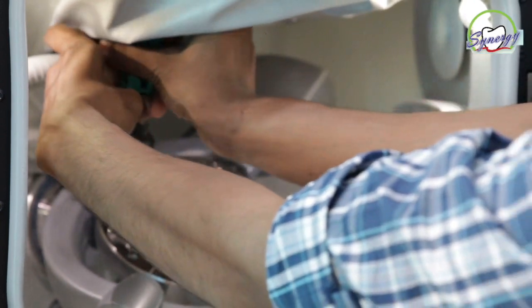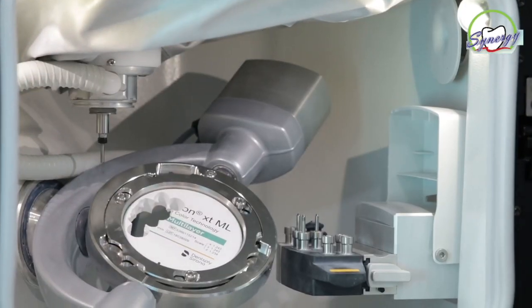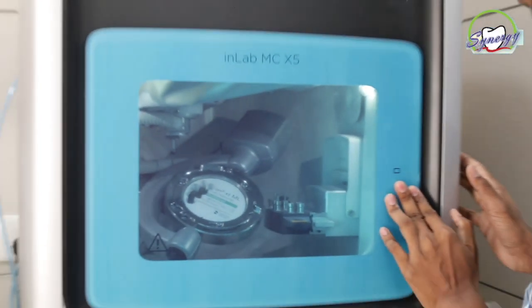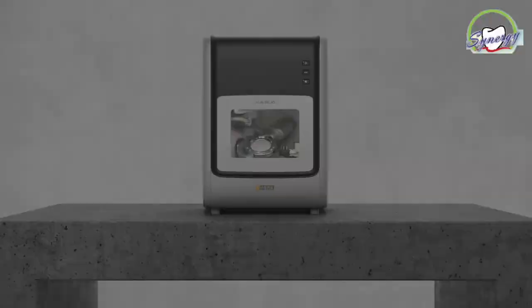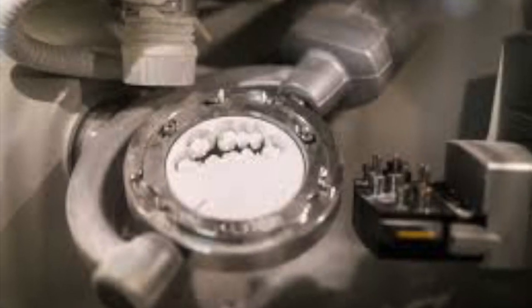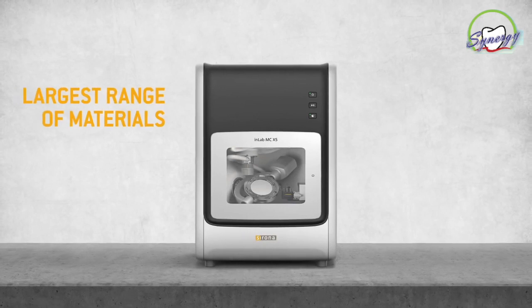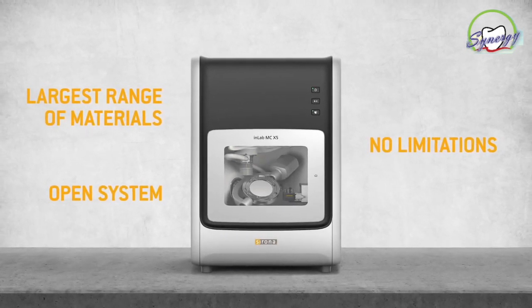The In-Lab MCX5 allows production of zirconium oxide, as well as polymers, composites, wax, and sintering metals.